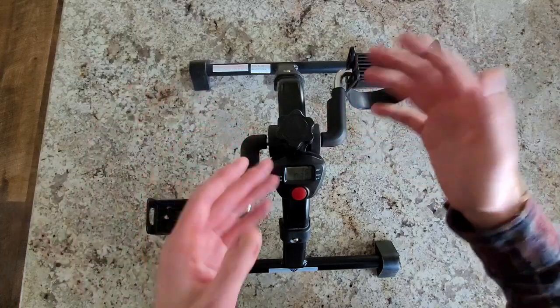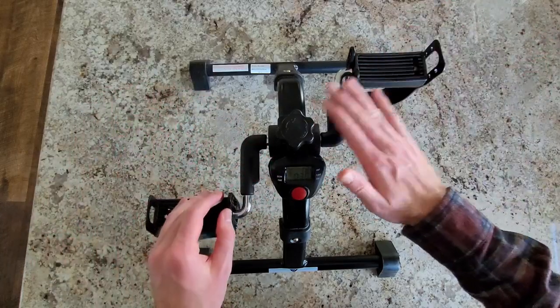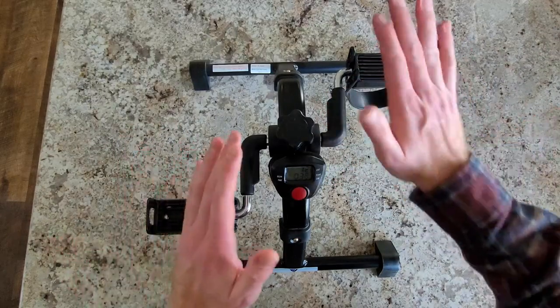So you're always moving, keeping things flowing. The doctors will love it, your body will love it, and you're burning calories all while you're at it. It's just like a bike — you just kind of pedal away.